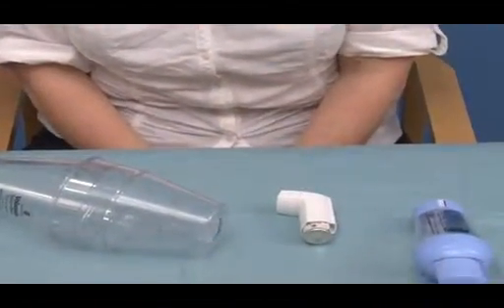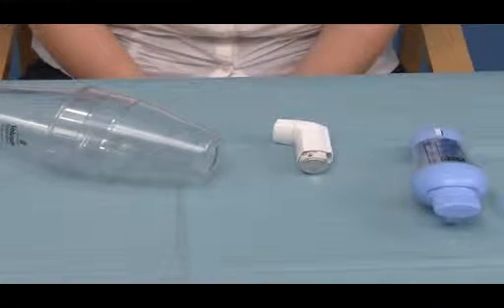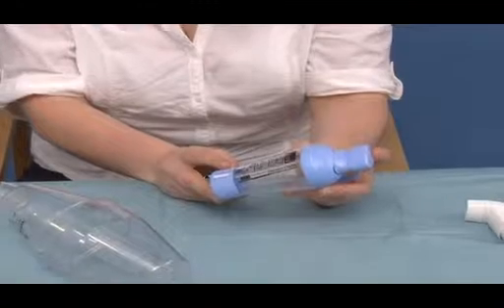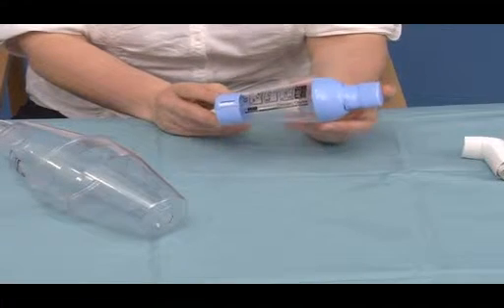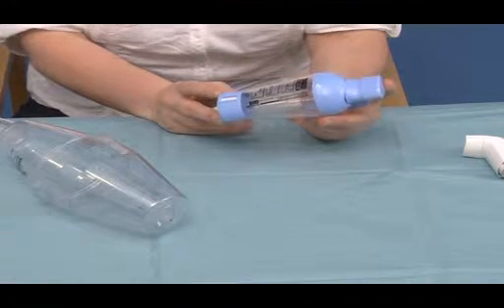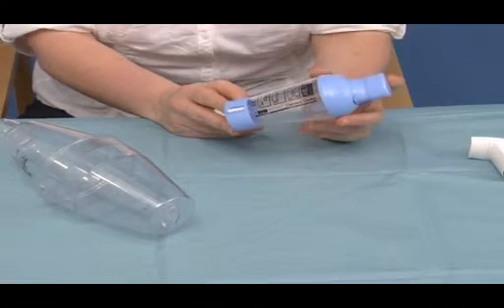Each inhaler device does have an instruction leaflet with it, and it's important to remind the patient, albeit they have been educated, to read this instruction leaflet prior to using the device. The spacer devices also have instruction leaflets, and again, it's important to encourage the patient to read these prior to using the device. In the instruction leaflet, it also advises about cleaning the spacer devices, and the recommendations in the guidelines are to clean your spacer device on a monthly basis. It's also important that these devices are renewed, and the recommendations would probably be about every 6 to 12 months to have a new prescription, to have a new spacer device.